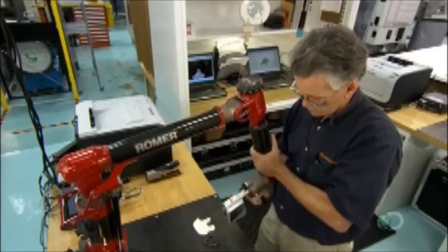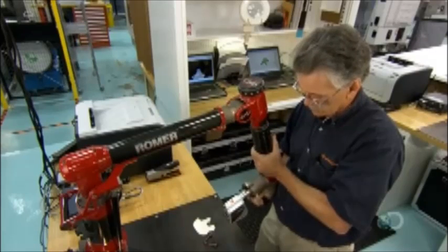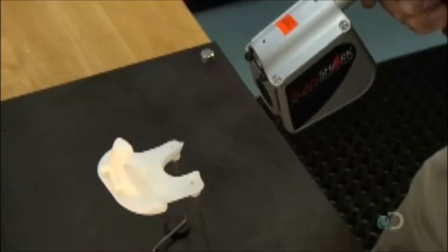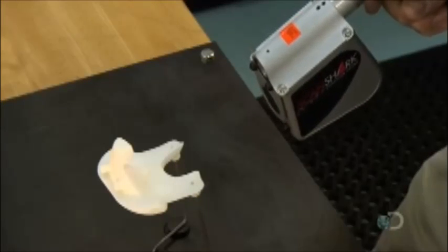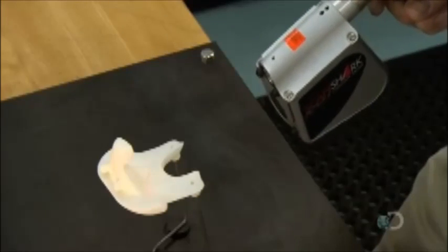Using a laser, a technician scans the template to make sure the manufacturing process produced an exact match to the patient's bone, as per the computer model.